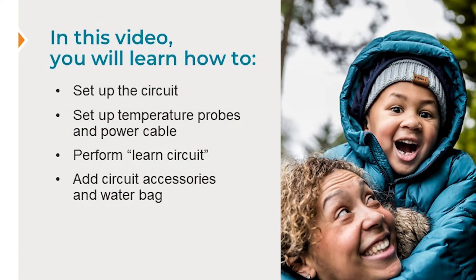This video shows you how to change your child's Astral ventilator humidified single limb passive circuit at home. We will also discuss how to do a circuit test called a learned circuit on your machine. A circuit is the tubing that connects your child's breathing machine to their tracheostomy, and this connection is used to help your child breathe.